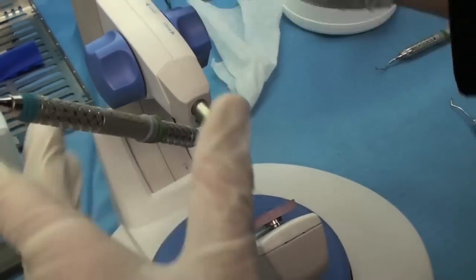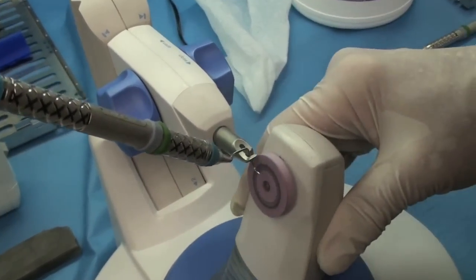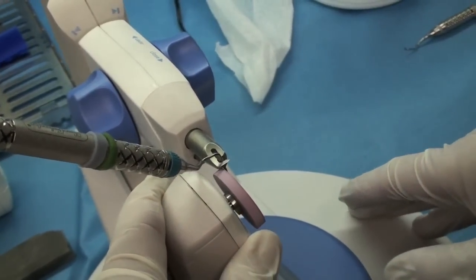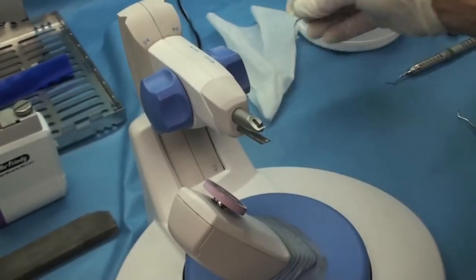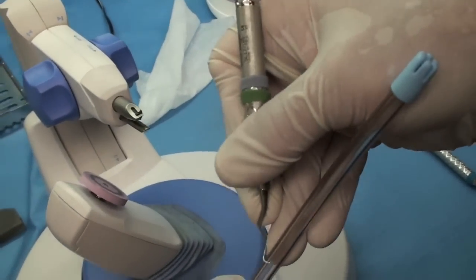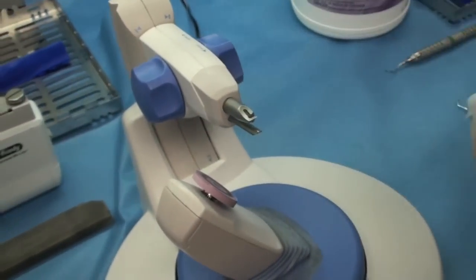I'm going to go down just to two. You just need to hold it there not very long. There we go. Now we got our ping going.